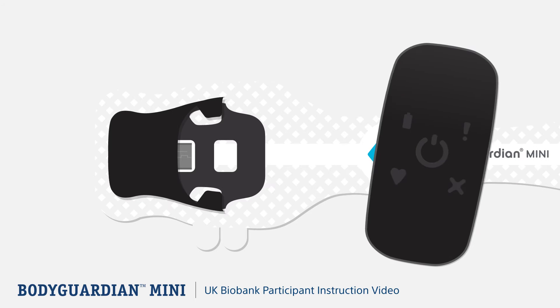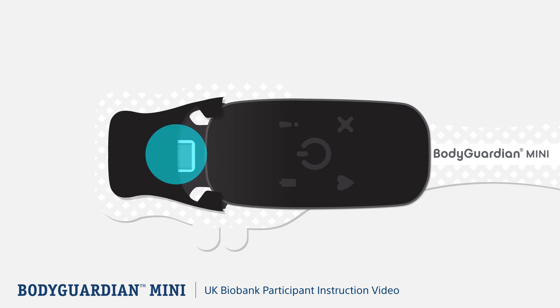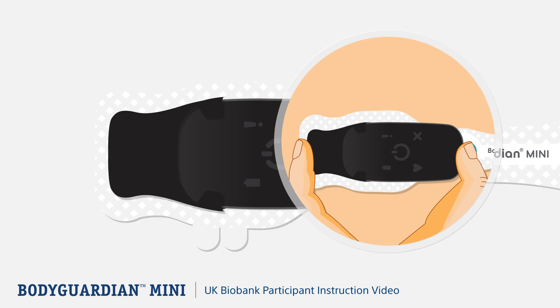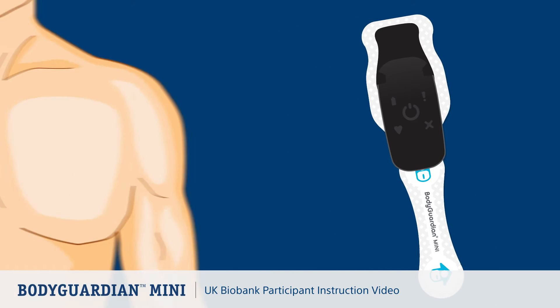Now let's take you through the steps to attach the monitor to the strip. Slide the monitor into the black molding until the micro USB connector on the strip is inserted completely into the monitor. This is most easily accomplished on a flat surface like a table. To line up the micro USB connector with the port on the monitor, you may need to wiggle the monitor slightly to align. To ensure a good connection, pinch together with thumb and index finger. Hold the monitor and strip assembly by the monitor, then peel away the strip's adhesive backing.